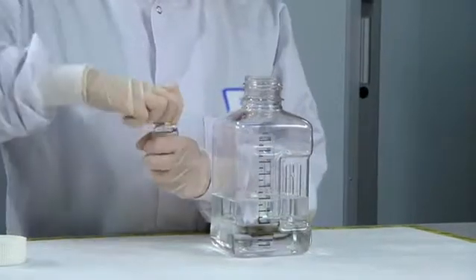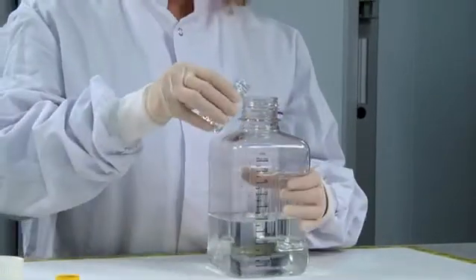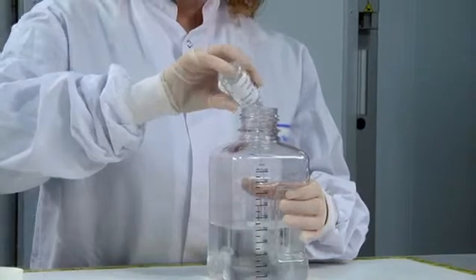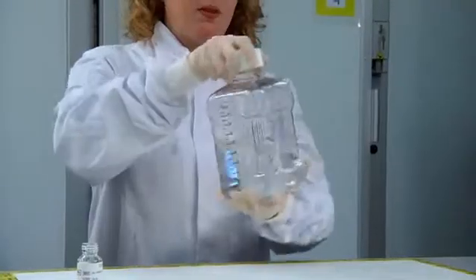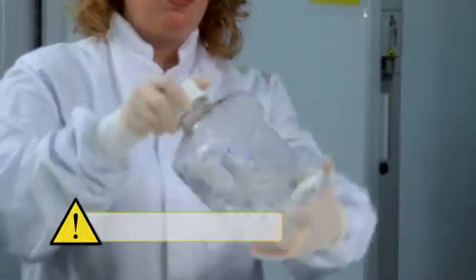Add the contents of the wash concentrate to 475 milliliters of distilled or deionized water. Mix well by inversion. The calibrators are not prepared at this point.